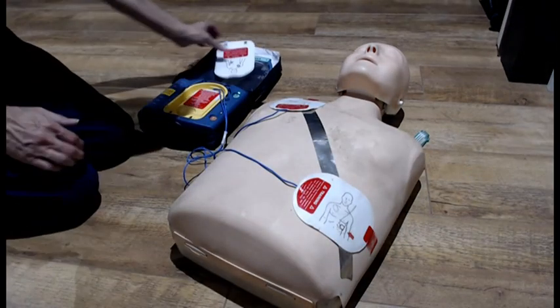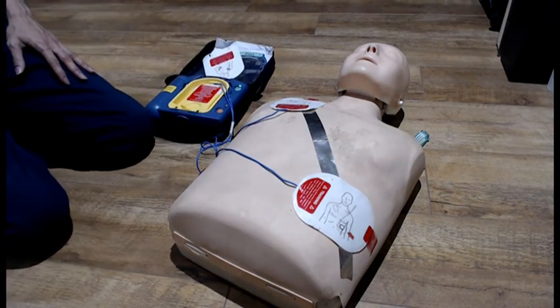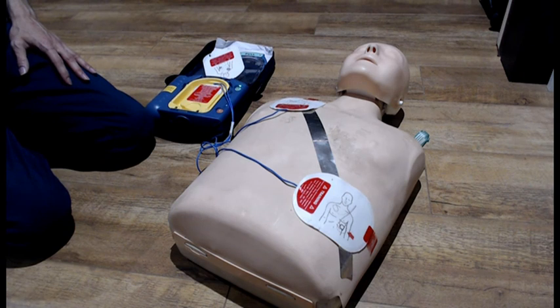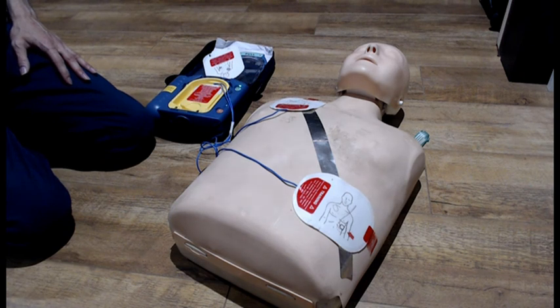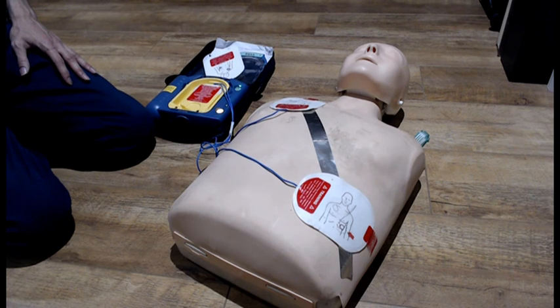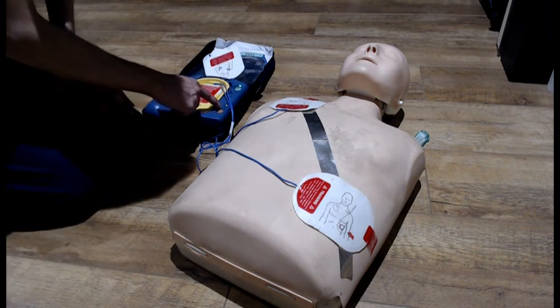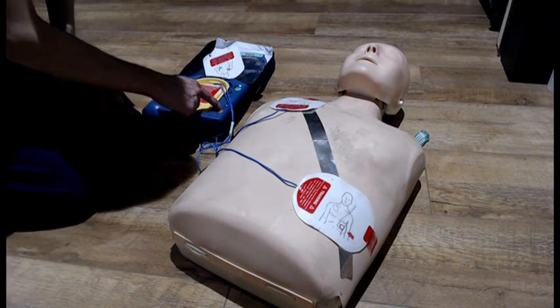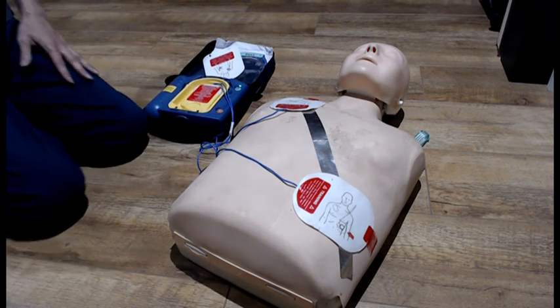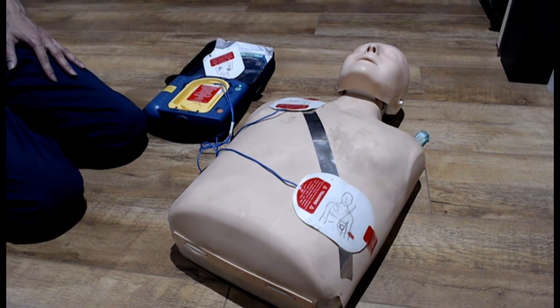No one should touch the patient. Analyze it. Shock advised. Stay clear of patient. Press the flashing orange button now.